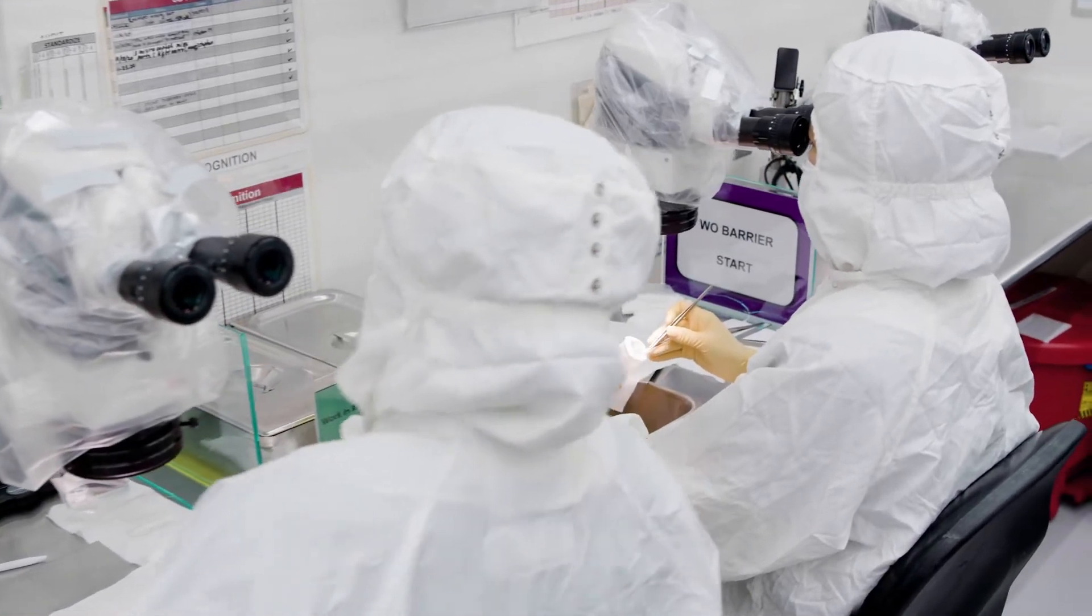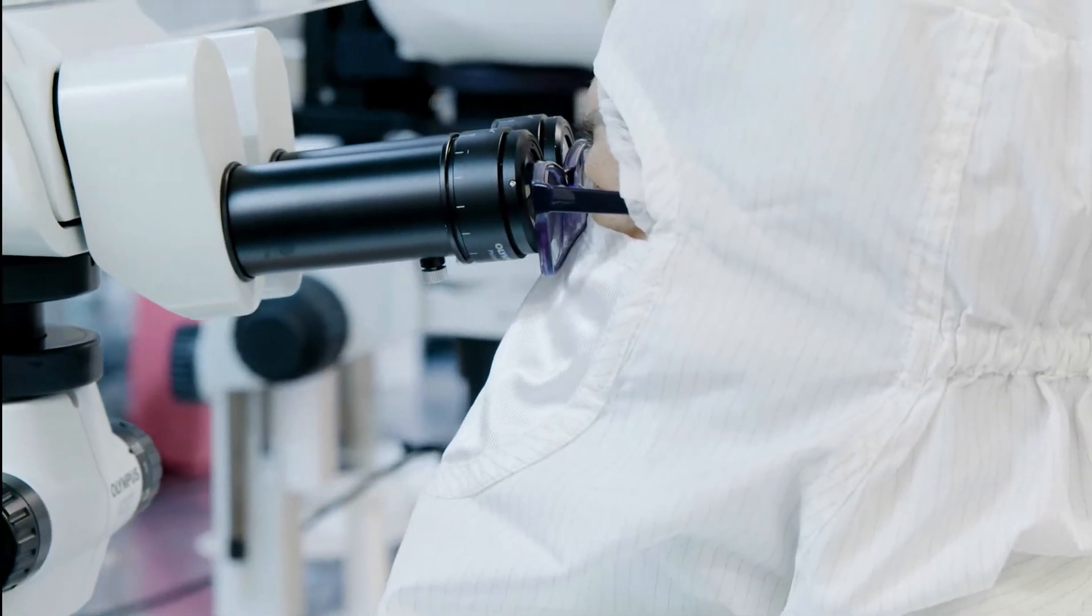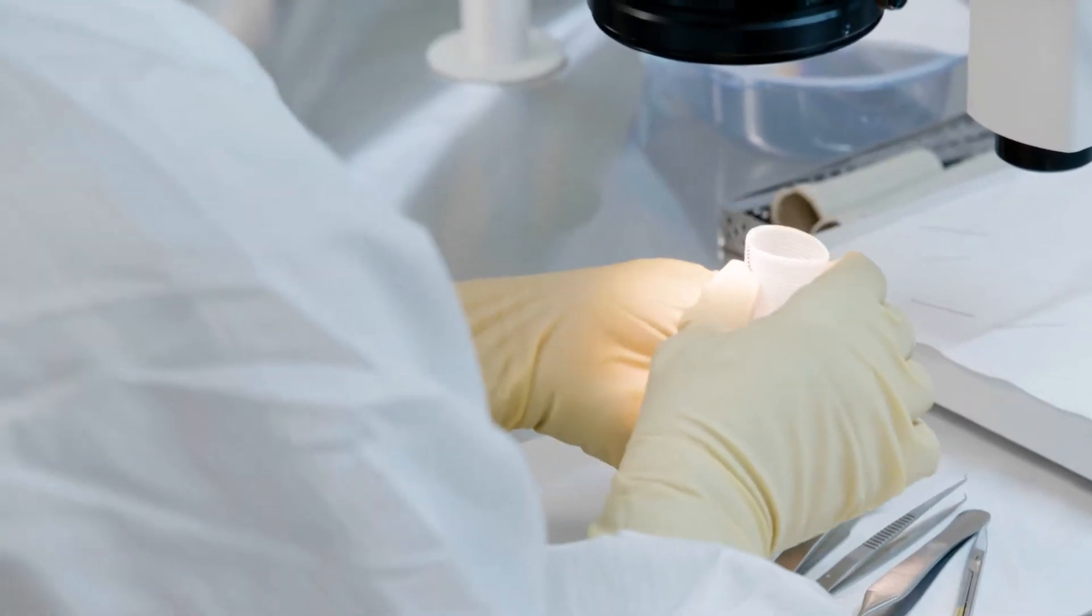Then, after design verification, there were multiple points of quality inspection and additional testing to ensure the product is ready to be shipped for use. Where destructive testing is necessary to assure the device meets requirements, representative samples are pulled from each batch before product release.